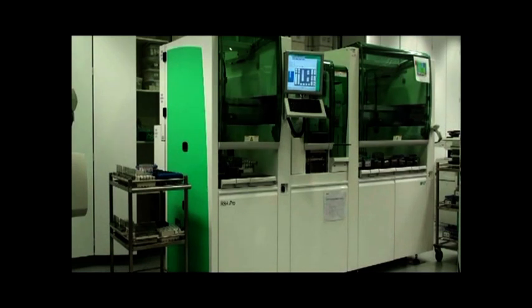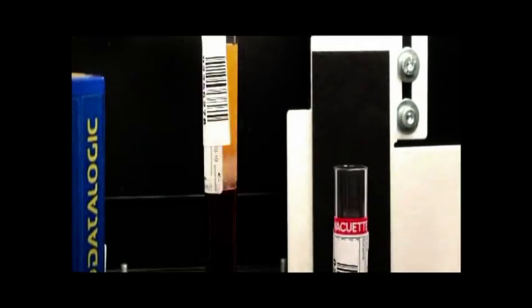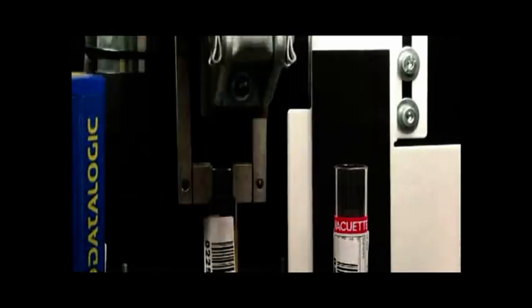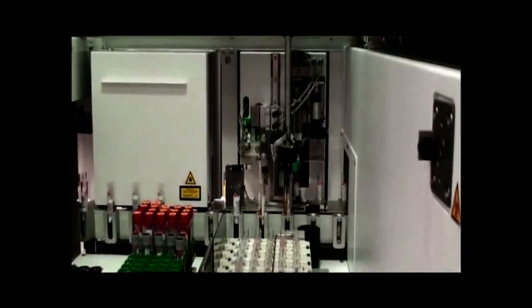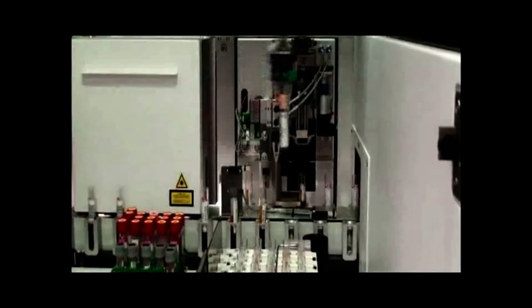In combination with using the latest technology and automation systems, MedLab can ensure the most accurate and efficient diagnoses of pathology samples.